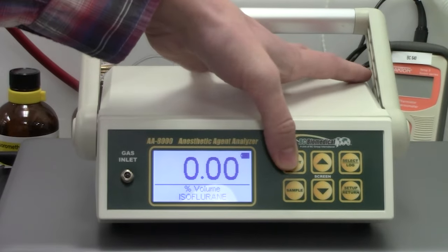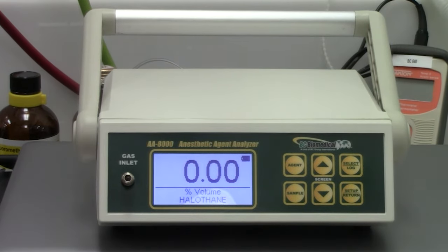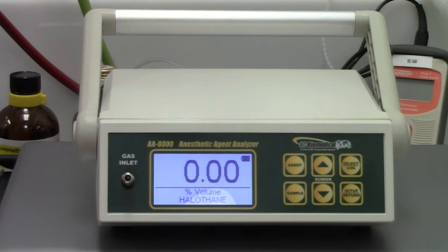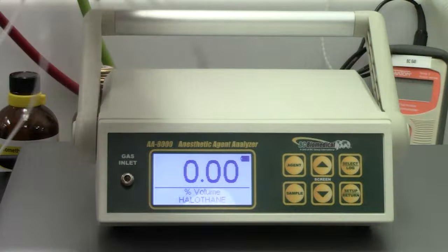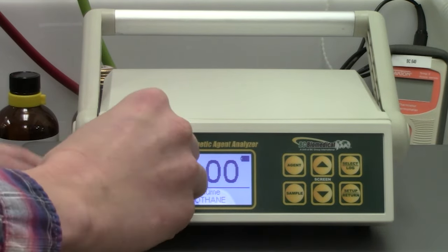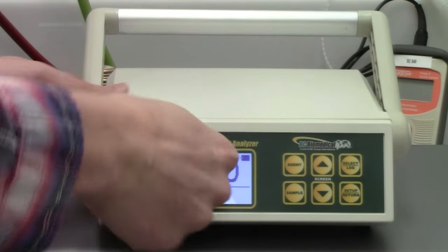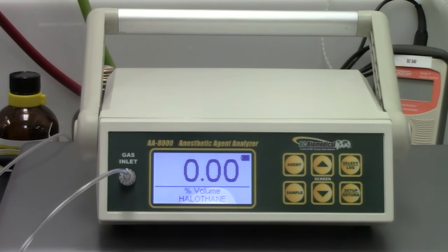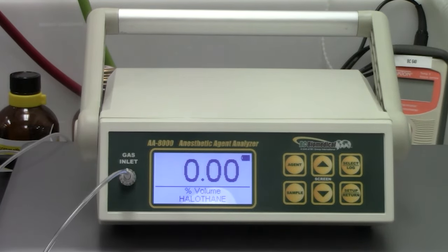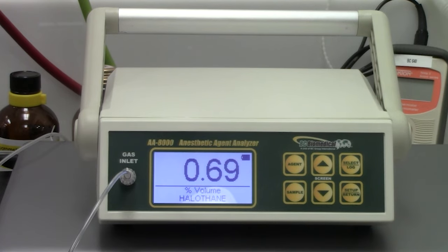We will begin by testing halothane. Press the agent button on the front of the AA-8000 until halothane appears as the agent being measured. Next, connect the sampling tube to the gas inlet located on the front of the Analyzer. Once connected to the halothane, the Analyzer will automatically begin pumping the agent.